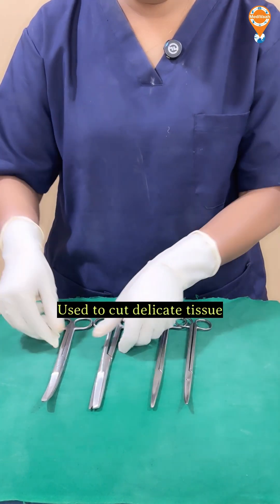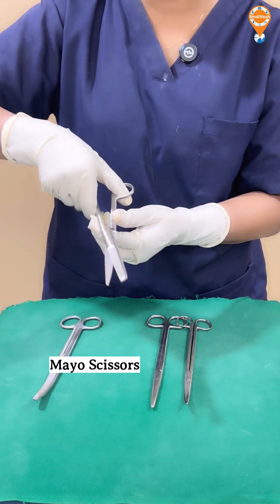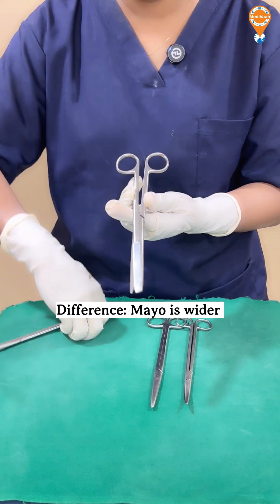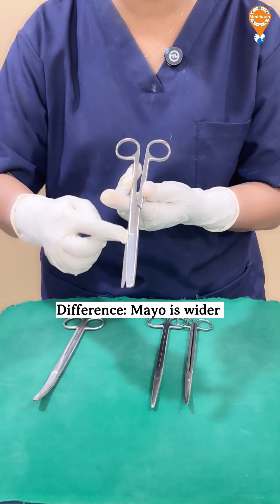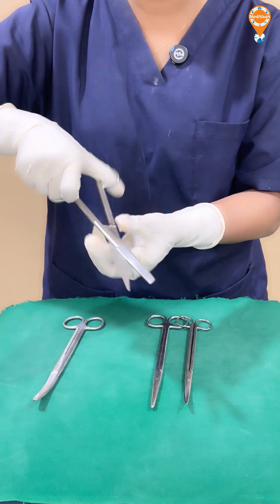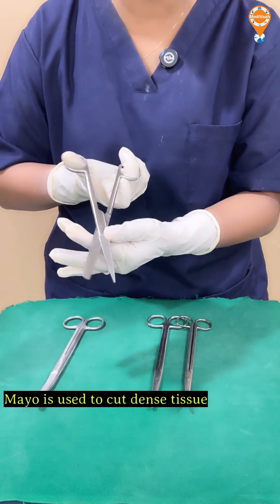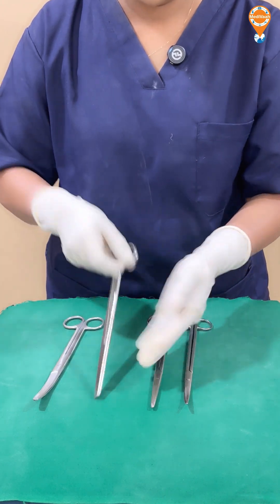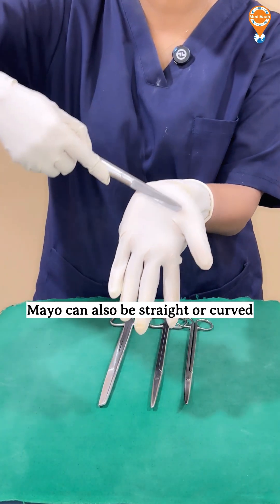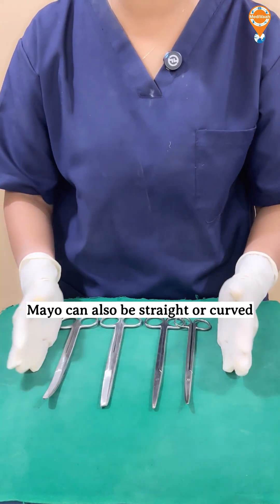To cut rough or dense tissue, we use a different type called Mayo scissors. The difference between Mayo and Metzenbaum scissors is that Mayo scissors are a little bit wider. The purpose is similar — cutting — but Mayo scissors are used for cutting dense tissue. We have both a straight and a curved Mayo scissors.